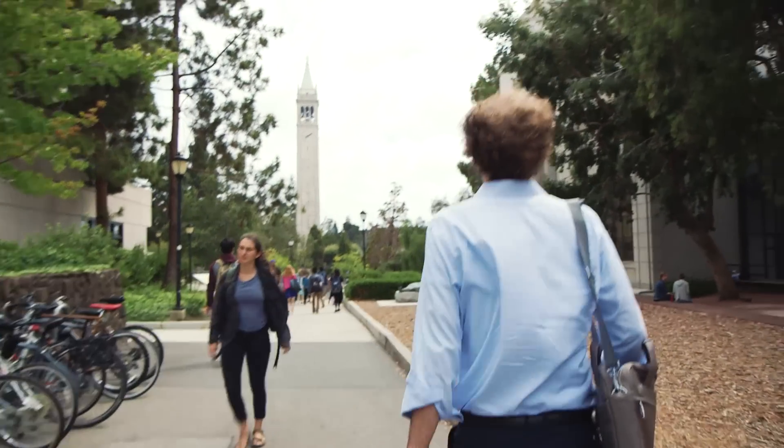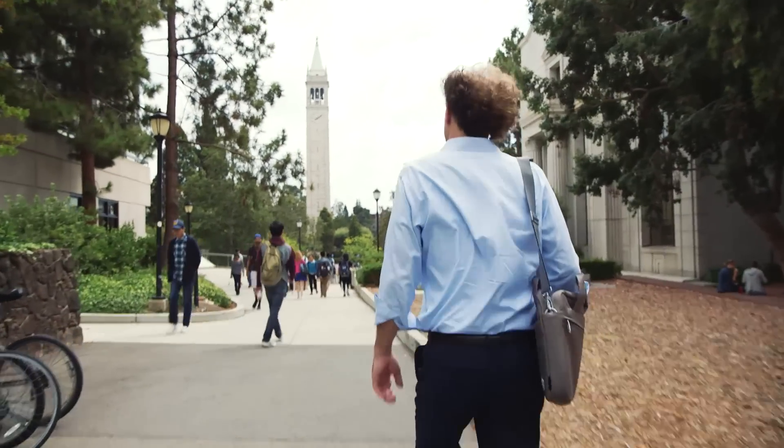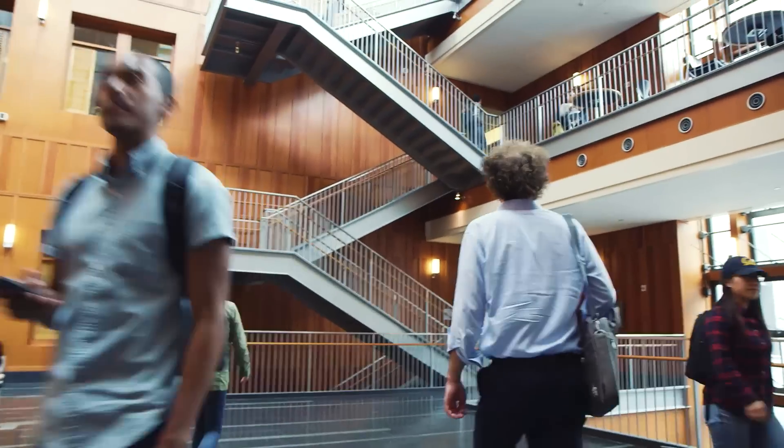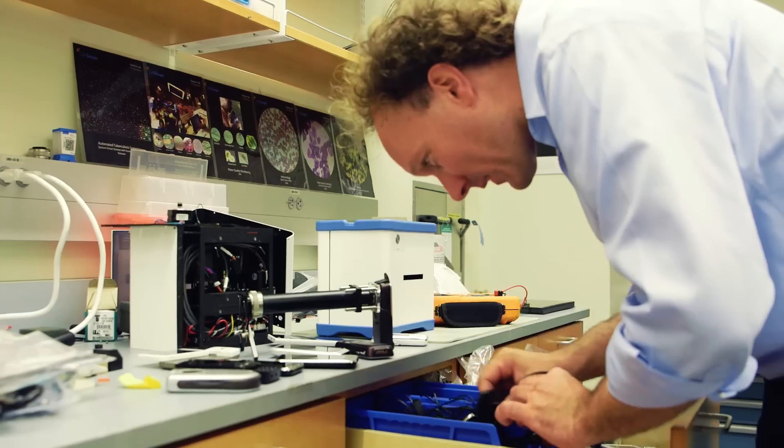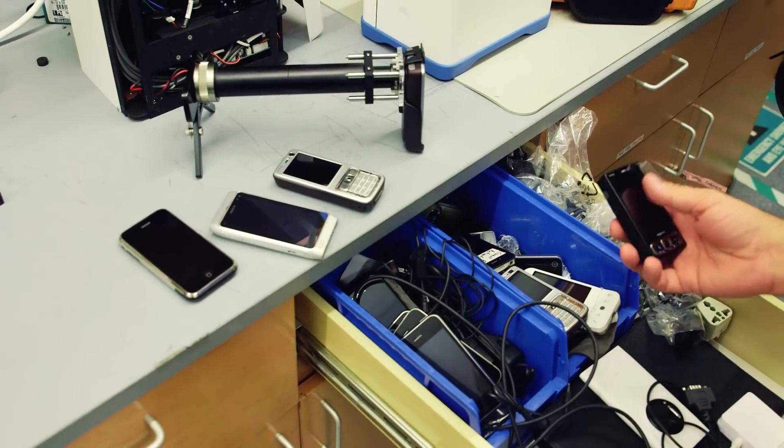I met with Professor Dan Fletcher, who explained how CellScope was born from a project he set in his optics class several years ago. The challenge to the students was, can you convert this mobile phone camera into something that takes a picture of a blood sample? The trick was you couldn't change what was in the phone.